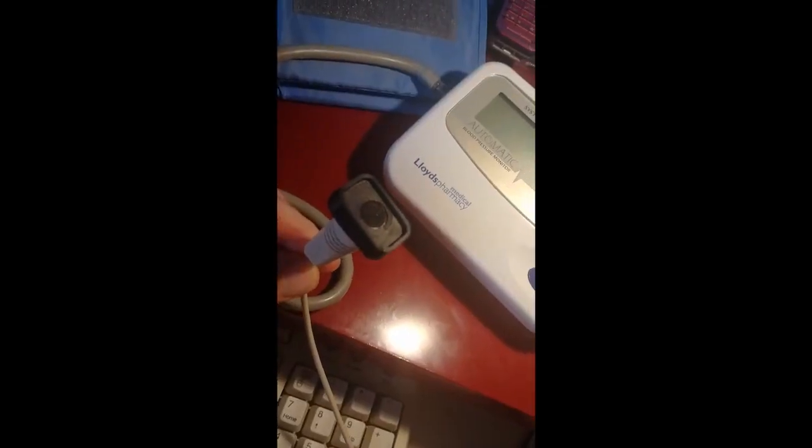Okay, so first of all, I've put on the end of it here a little bit of 3D printed plastic with a little well inside it to act as a little chamber for the microphone. And the first thing I want to show you is the sound of the heart that you can record directly using this microphone against the chest. So let me do that first.